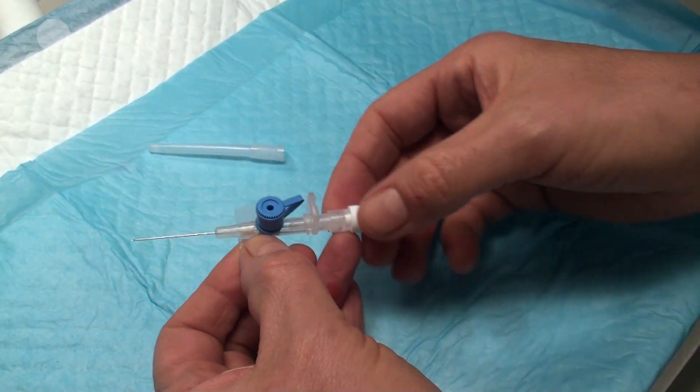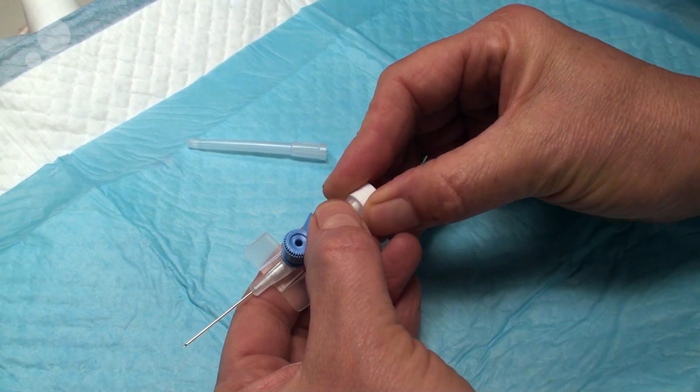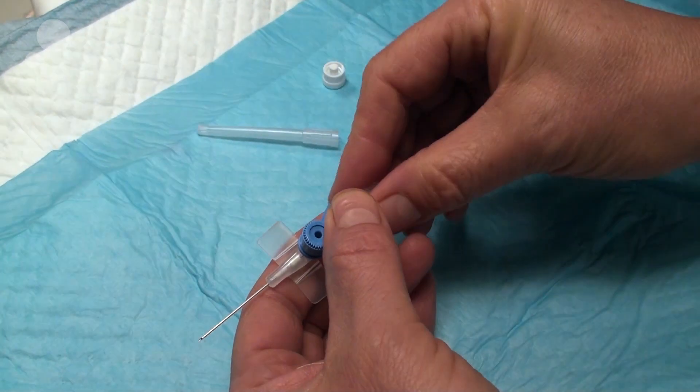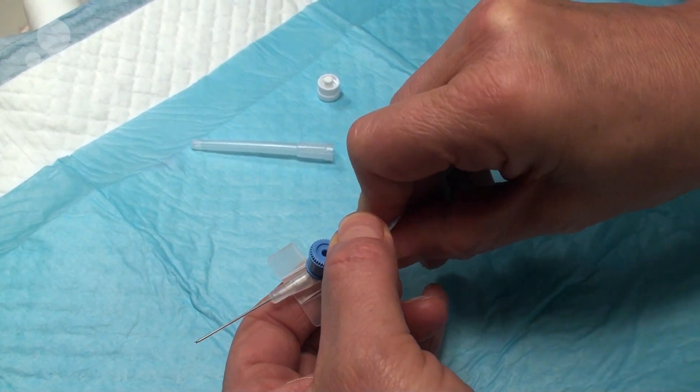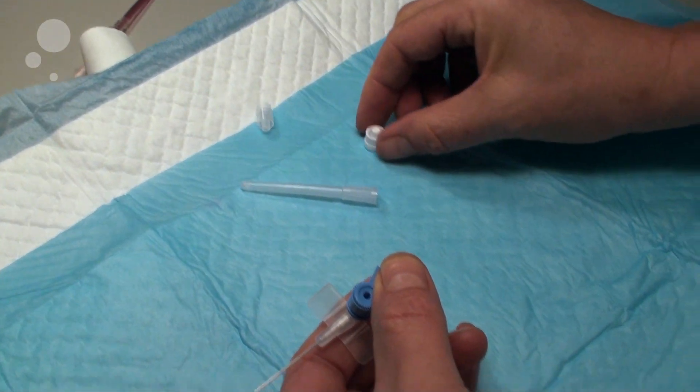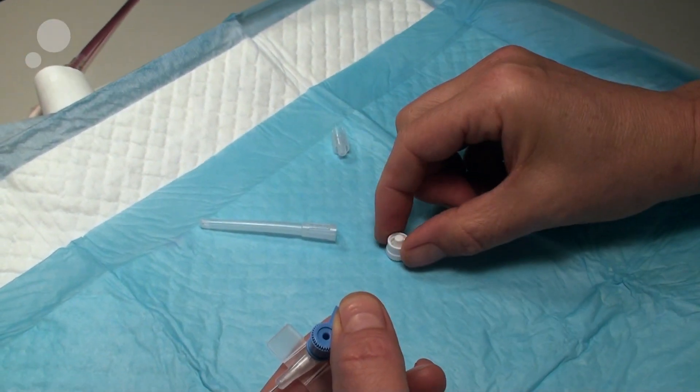Remove this one, and please be aware that there are actually two stoppers in the end. The middle one you will take away, and this one you will save for later.